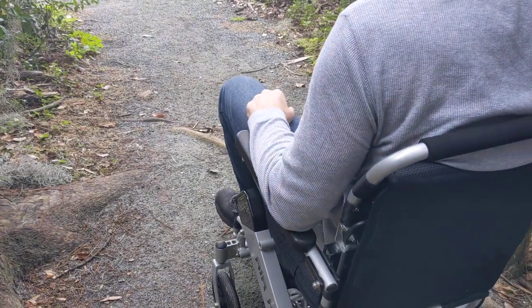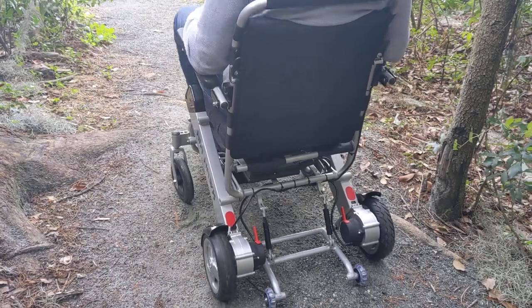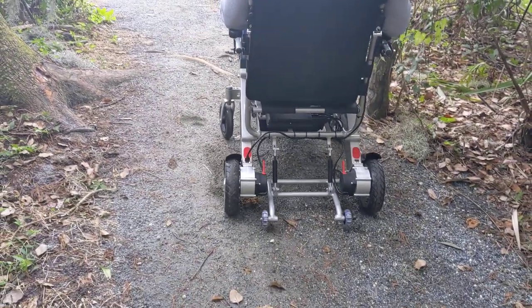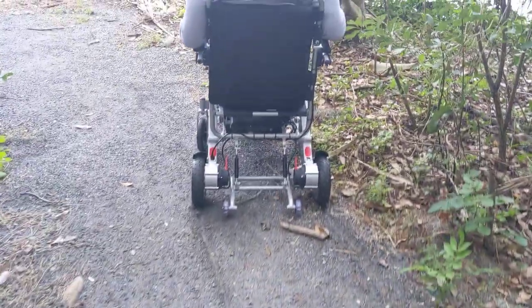I'm going to go to the right just a little bit. We'll go ahead and back up — he's on the sand, folks. Look at that — nice and easy.